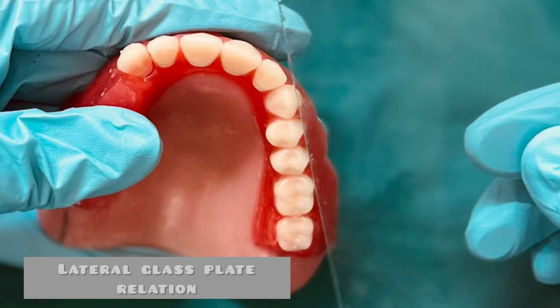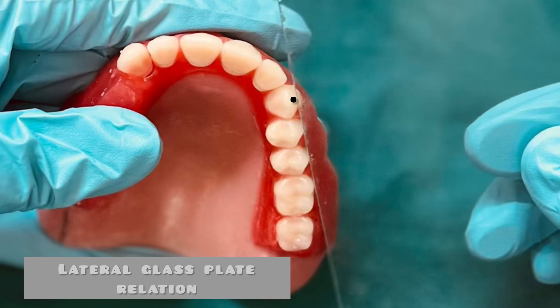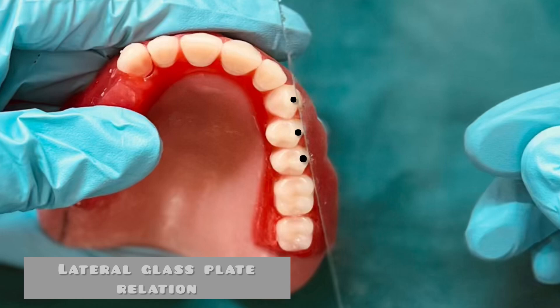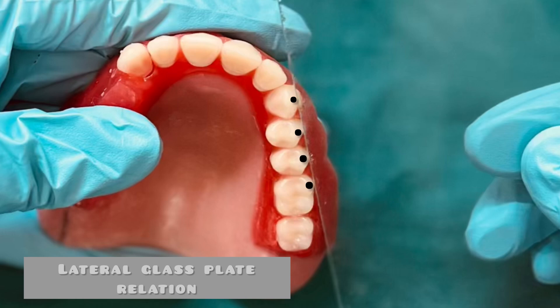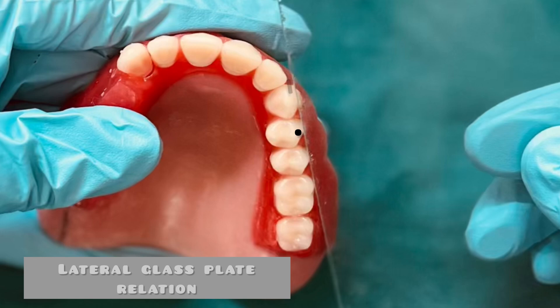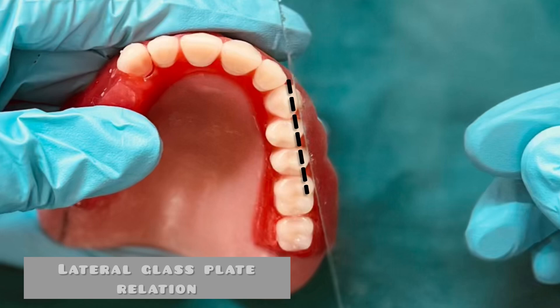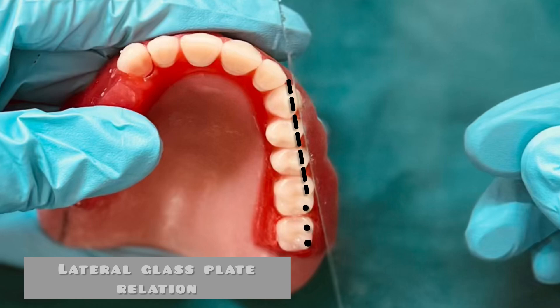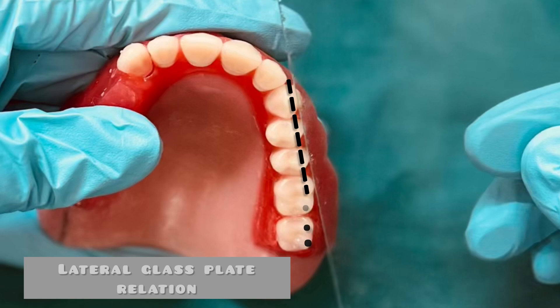In this picture, you can see that the cusp tip of the canine, the buccal cusp tip of the first premolar, second premolar, and the mesiobuccal cusp of the first molar touch the glass plate when viewed laterally. The second plane is formed by the distobuccal cusp of the maxillary first molar and the buccal cusp of the second molar.